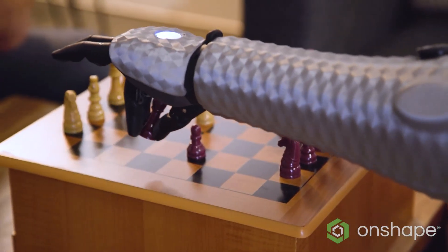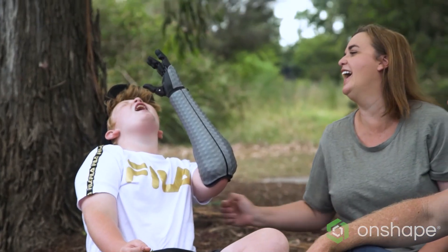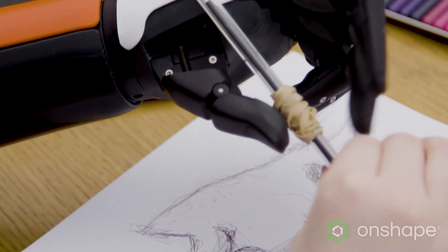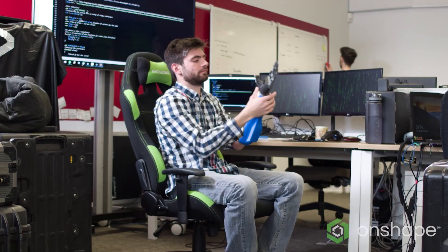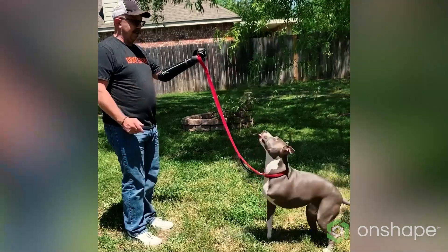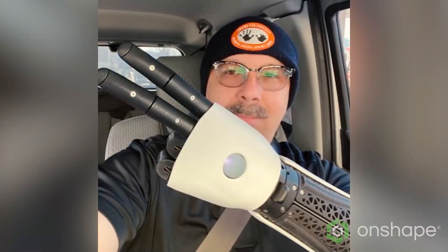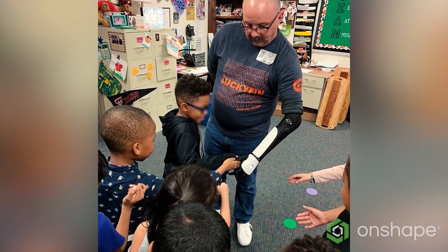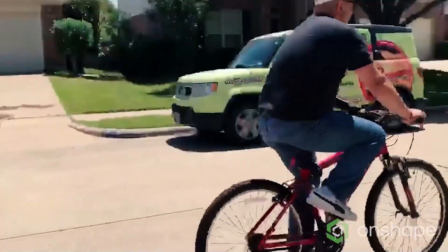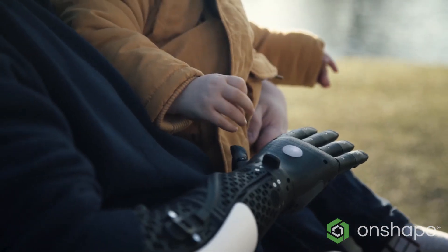Product design is a really important part of the robotics process and how we came up with the Hero Arm and why it's so loved by its users. Previously, engineers may have attempted to design a prosthetic arm for a reimbursement code and for an insurance company. We took the opposite approach — we would work with the users and ask them to draw up their ideal device. One of the most important insights from those user workshops was how important the aesthetics of the device was.